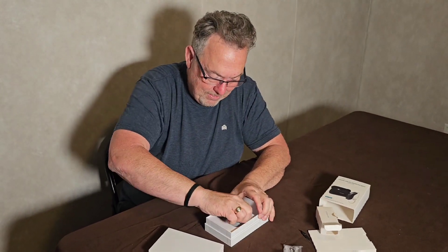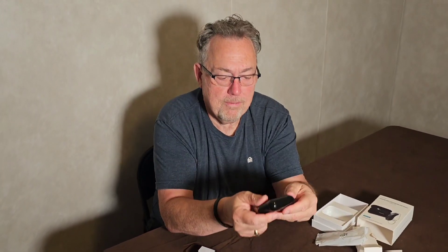Let's get to the meat of the product: the box with the hearing aids in it. First, I want to call out what a nice sleek package and design this is — it's not much bigger than a box of Apple or Samsung earbuds, maybe an inch wider. The cool part is this case is the charger itself. You hook up the USB charger to the bottom and then to a wall charger. Once you charge this case, it carries a hundred hours of charging for the hearing aids. So if you use them 10 hours a day, that's 10 days of charging just from this case before you have to charge it again.